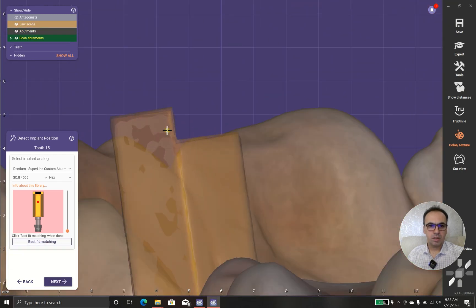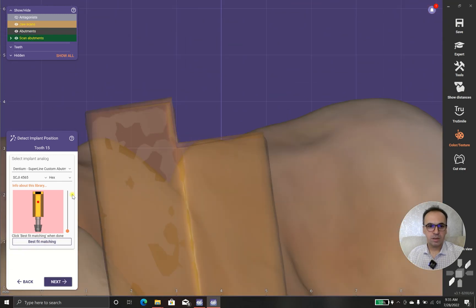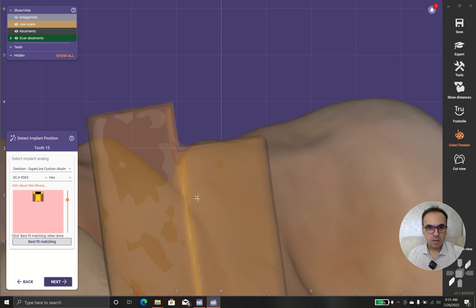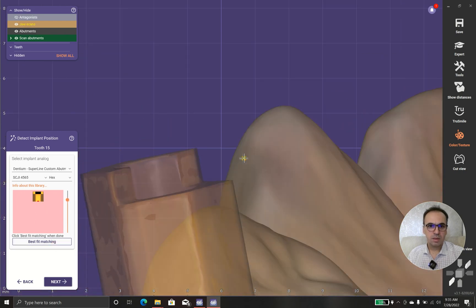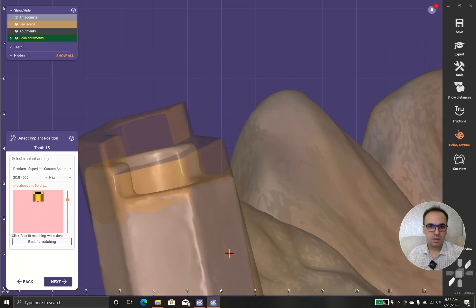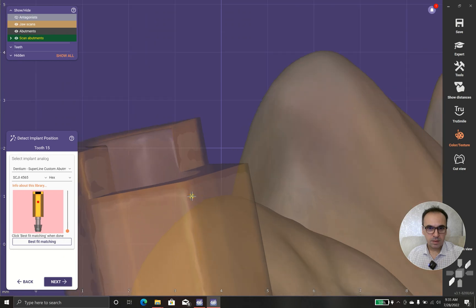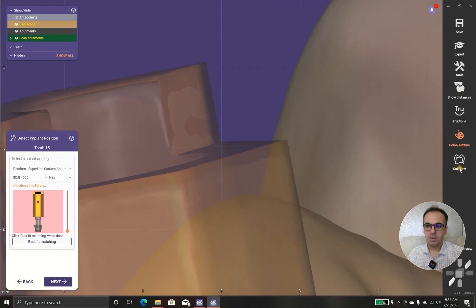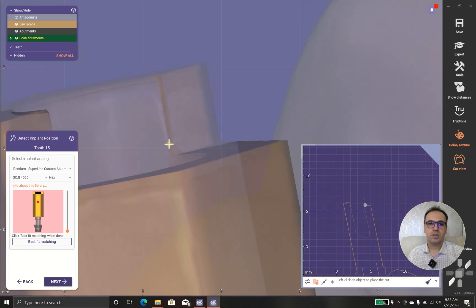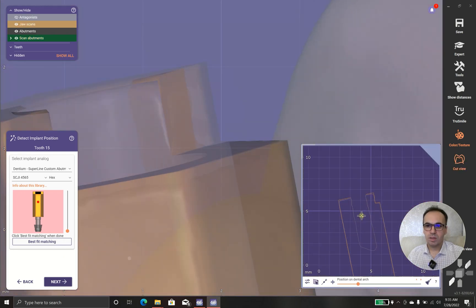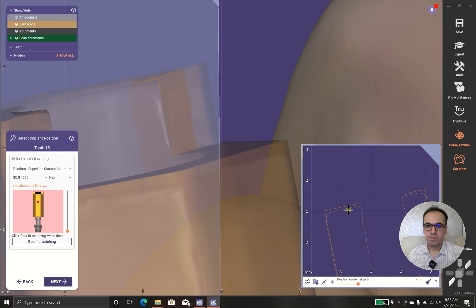You should take care of here. In case that you see, this should fit completely. And look, there is a gap here. There shouldn't be even a small gap. It's not acceptable.